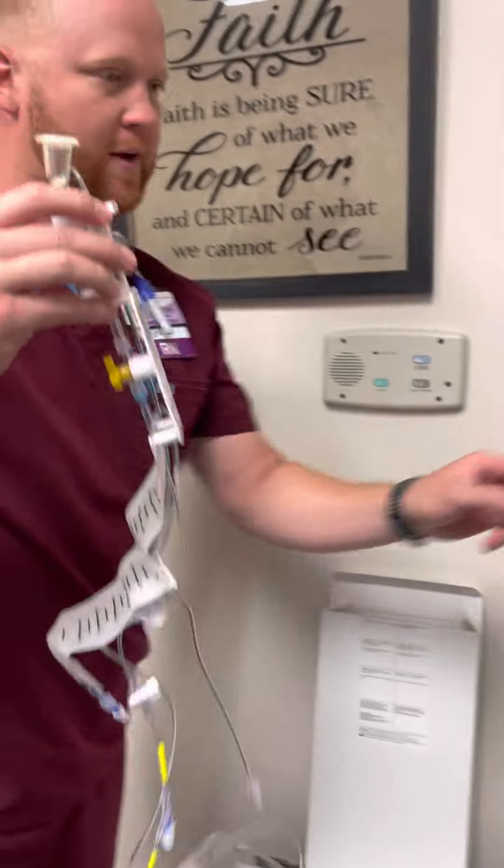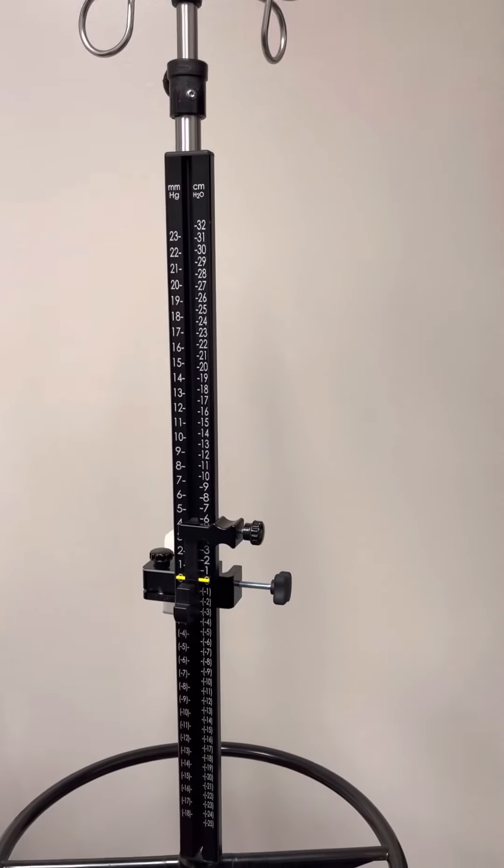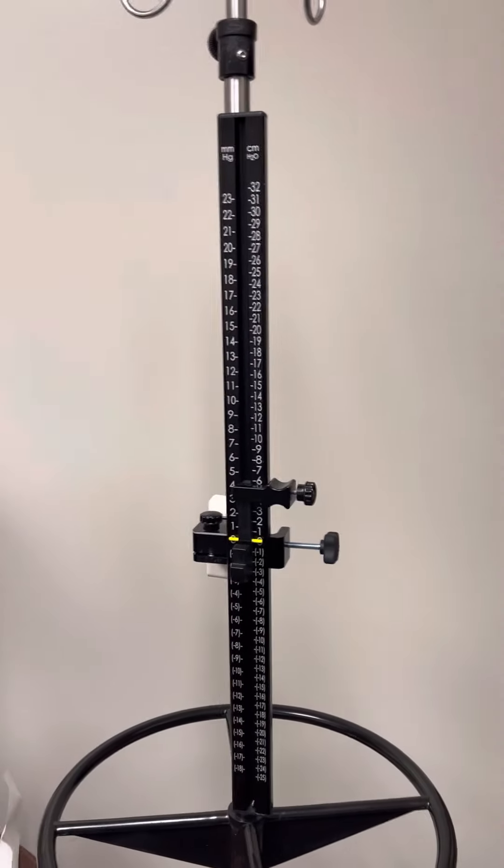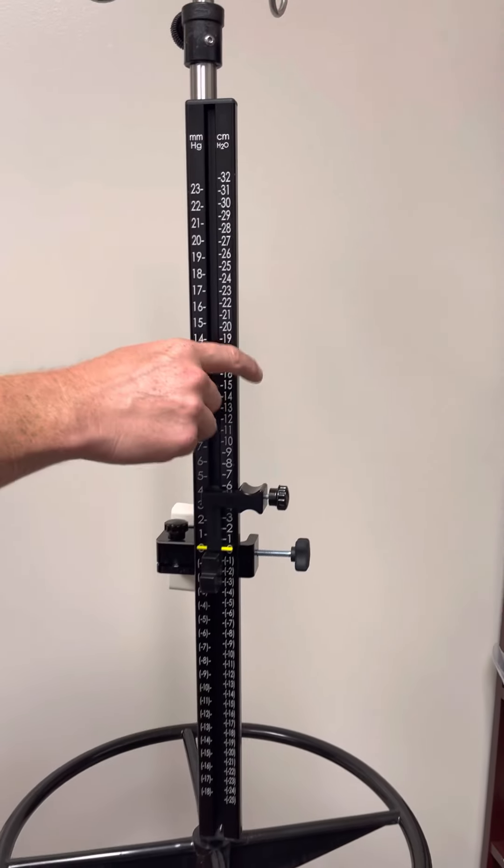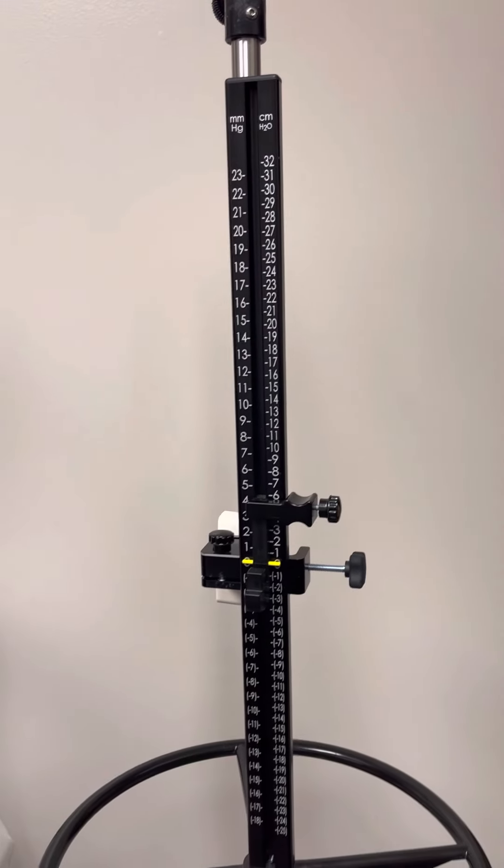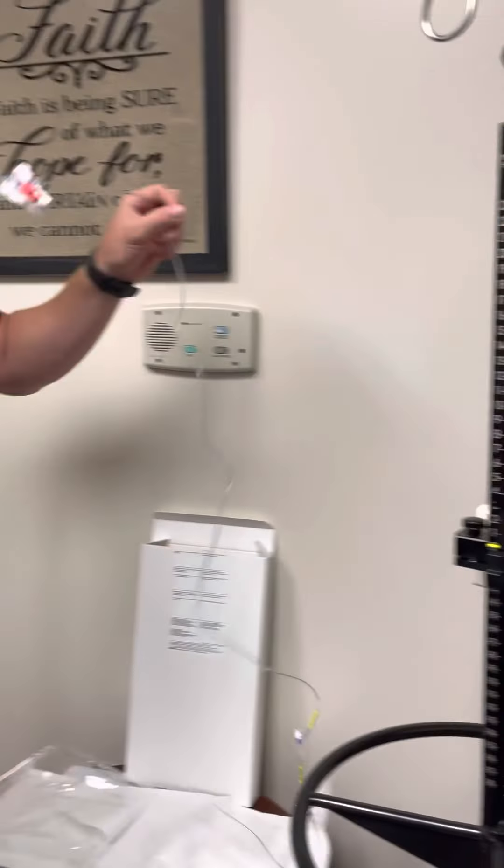The Limitor level device is this. Does that also come from the OR? No ma'am, the device, the level device is kept in our 1711 supply room, clean supply room.